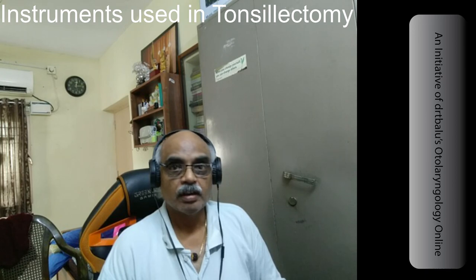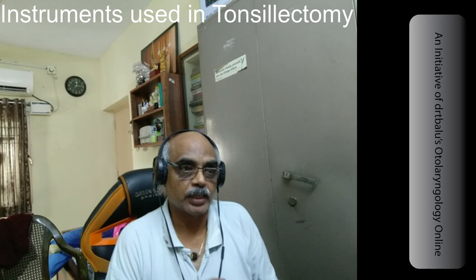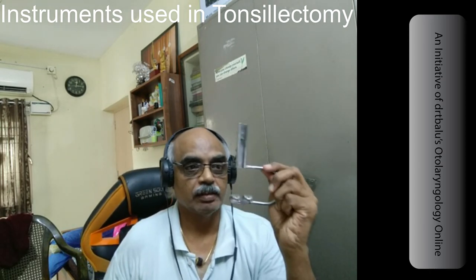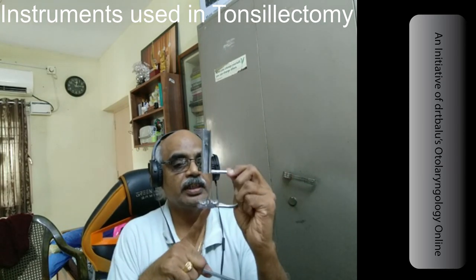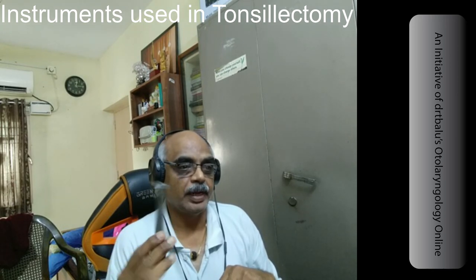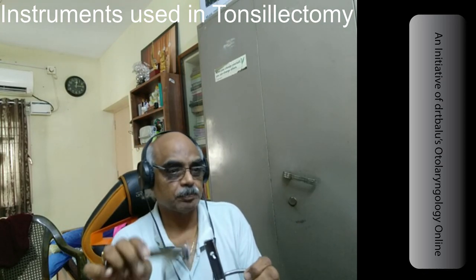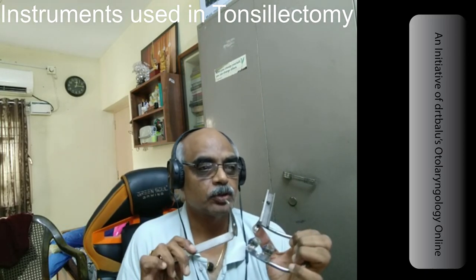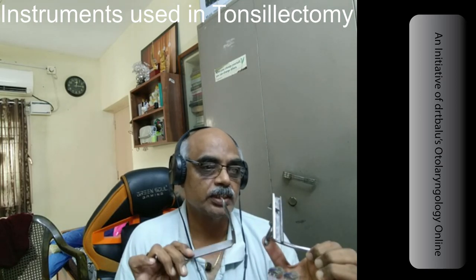The first instrument is the one used to keep the mouth open, known as a mouth gag. This is the Boyle Davis mouth gag — it is actually two instruments combined into one. It is shaped like a D — D for Davis. This is Boyle's tongue blade. These two instruments can be merged together to make a single instrument. This particular mouth gag is known as a Doughty's variant of Boyle Davis mouth gag.